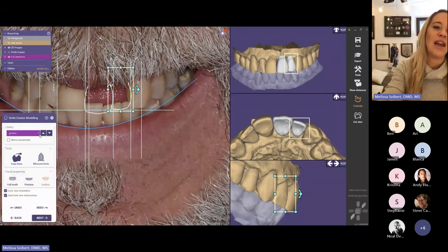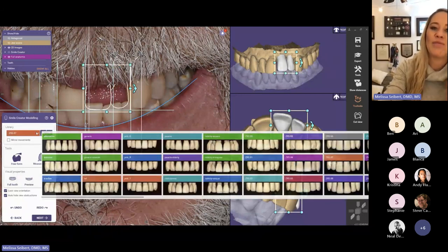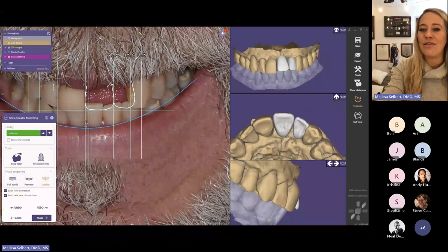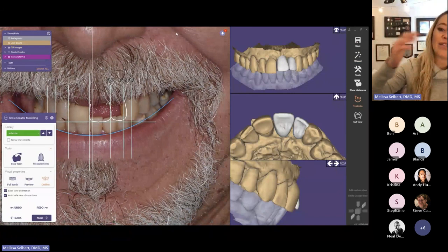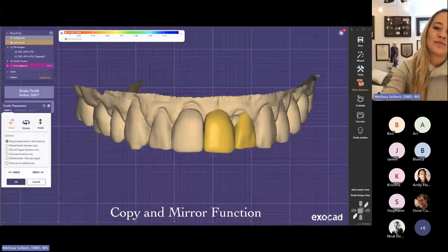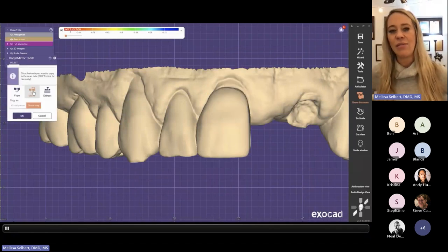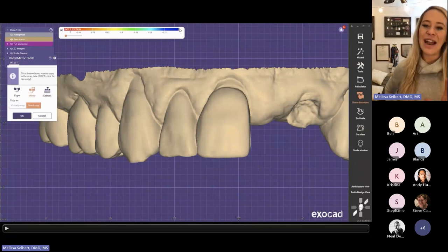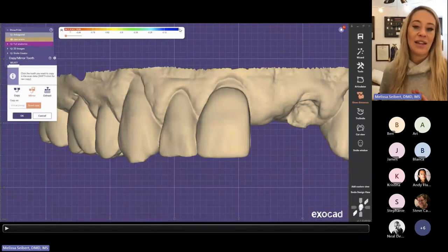It was nice to go through the tooth library and select the teeth — what I'm trying to do is pick teeth based on what fits his face most. One criticism of this software is that people say you're just plugging and playing denture teeth. That's really far from the case, because you start out with an initial tooth, but then you can use the different design features to pick other teeth or to modify it however you need. We played around for a while, and he determined that he actually likes the morphology of teeth 7 and 8. It's not necessarily what I would have picked, but that really doesn't matter. So we used the copy mirror function to replicate 7 and 8, which also helped demonstrate to the patient that we did have some limited space on 9 and 10. He declined limited ortho to create more room, but it was good to have that informed conversation.